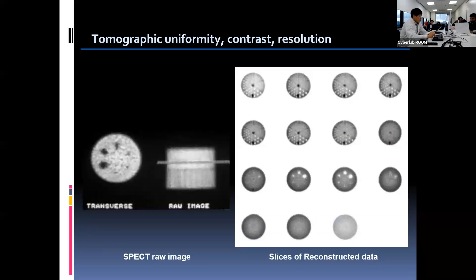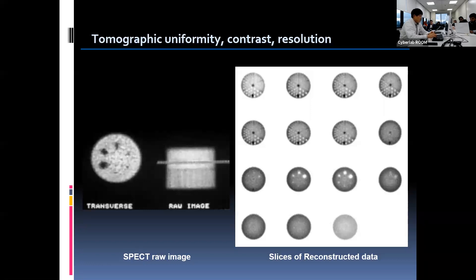This is the SPECT phantom image. Acquired data is reconstructed using a filtered back-projection algorithm with a high-resolution filter, and we can get each part of slices from the reconstructed images for reading. The homogeneous radioactivity segment is visually inspected for uniformity and checked for any artifacts. We read the contrast segment to look for how many cold spheres are actually visible — we should be able to see at least three large spheres if the camera is in normal condition. We then look at the rod segments to see how many rod sections can be observed; the first or second smallest rod sections are normally not clearly seen even under good camera conditions. So the result of this tomographic study satisfies the acceptable limit.